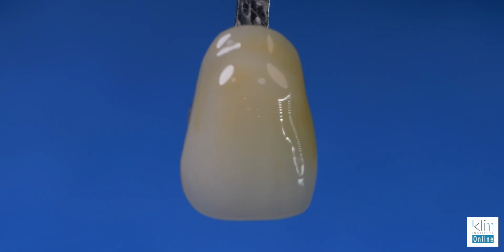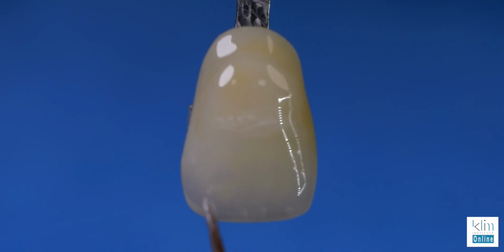Wasn't that a lot of fun? This is what I do when I learn or I get a new product. I will use it and practice with it until I can get that technique and that flow down and the feel for how you layer ceramics on this liquid ceramic of MiYO. You can layer it in different layers. You can also sit there and mix it together based on what you're trying to accomplish.